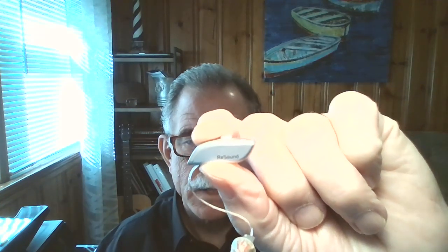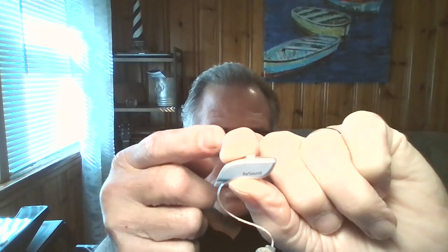I'm currently on my fourth set of hearing aids, which I purchased from ZipHearing, and this is the model I chose — the Resound Omnia. I chose this model for several reasons. The first is that it's a RIE, or receiver-in-ear, model, and it has the power I need for my particular type of hearing loss, which is pretty severe. Plus, the majority of the hearing aid is situated behind the ear, which makes it inconspicuous.